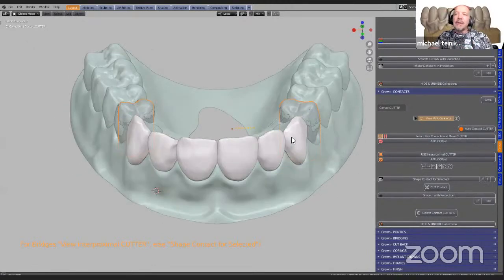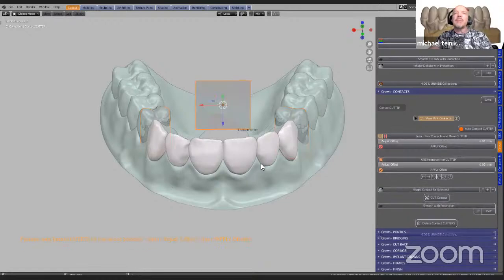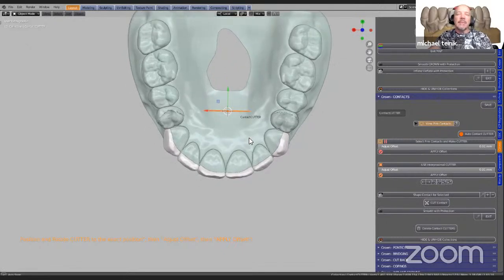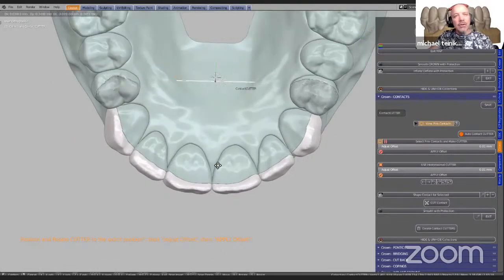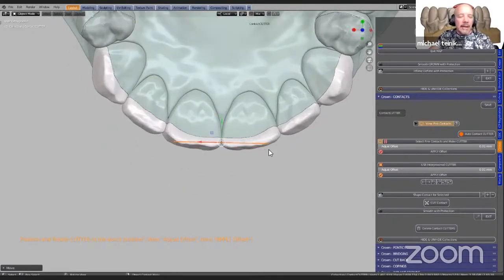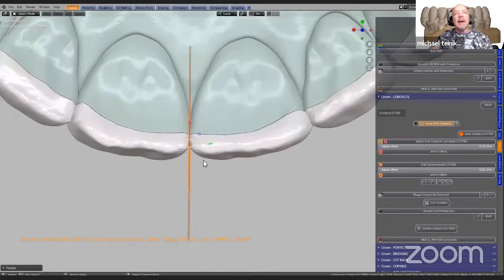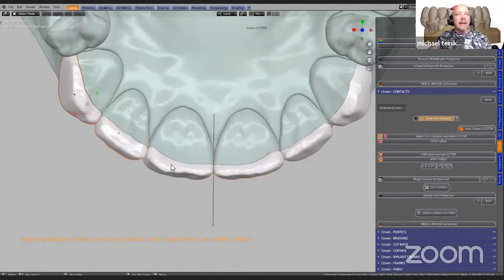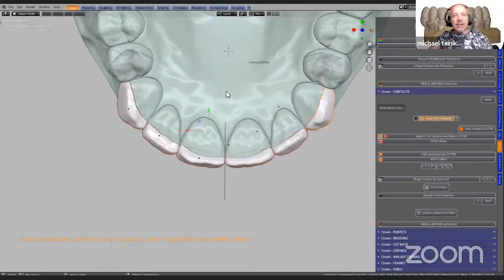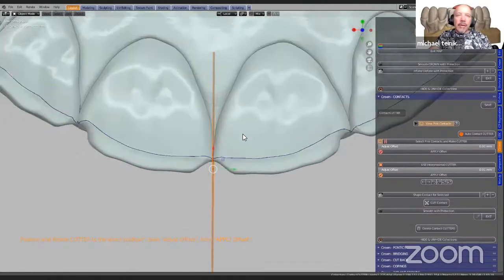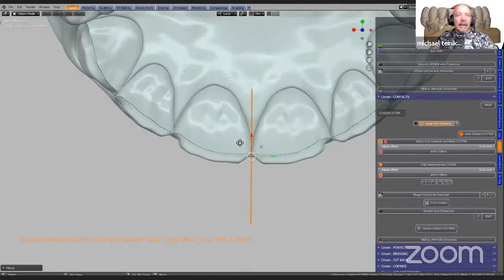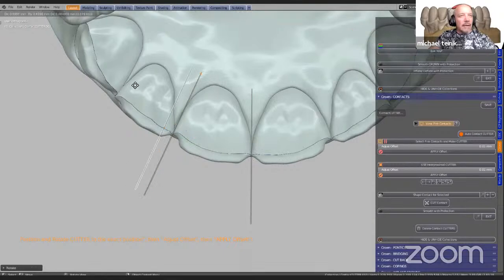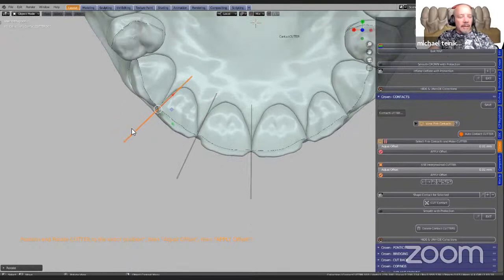Not only that — we need another cutting tool, and this is our interproximal cutter. I'm going to use interproximal cutter. This brings in a plane with a thickness of 10 microns — it's very thin, but you can set this bigger or smaller. If you've got two crowns and you want a diastema in between, you would use this cutter to bring that in line. Now we need a few of these. So I'm going to click on my crowns and hide them. Blender has shortcut keys: H is to hide. I'm going to view this from the top, then use Shift+D to duplicate and position it, with the R key to rotate. And we're going to do this again — Shift+D, then R key to rotate — and do this for all of them.